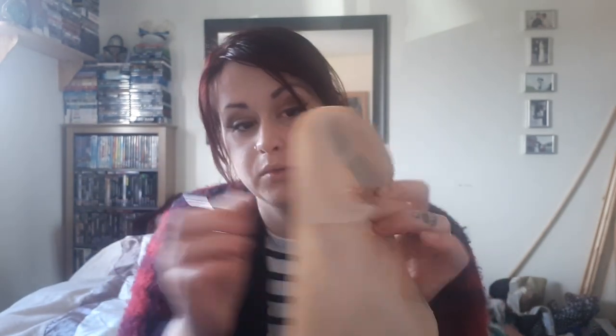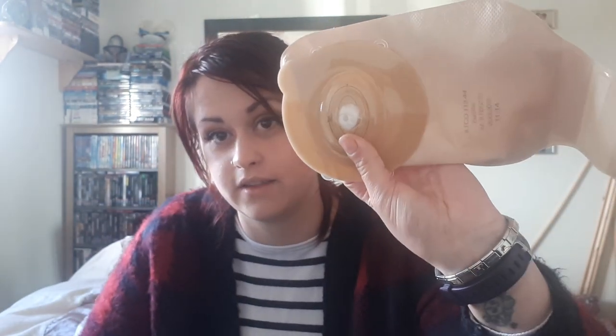Steve suggested — because he's a clever clogs — that when I first did it I cut up there just so I could see what I was doing. Even though I'm the only person seeing it, aesthetically it's not pleasant. What he suggested was just moving your pouch until you get the vent there, because the next step says: once the vent is securely bonded, pull the top of the pouch down through the stoma opening until you can see the outline of the vent. Insert the narrow blade of scissors.